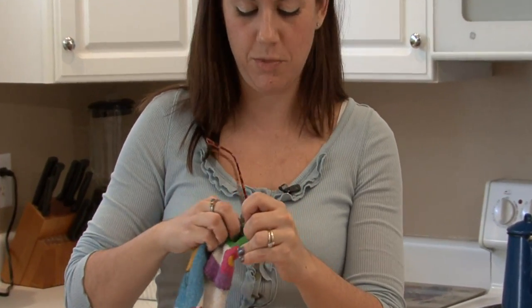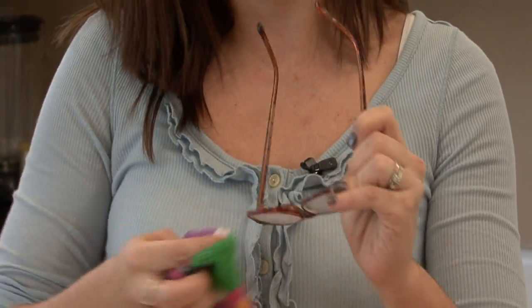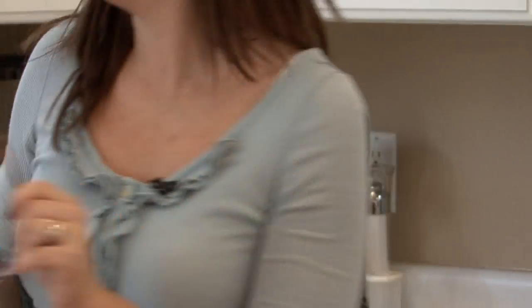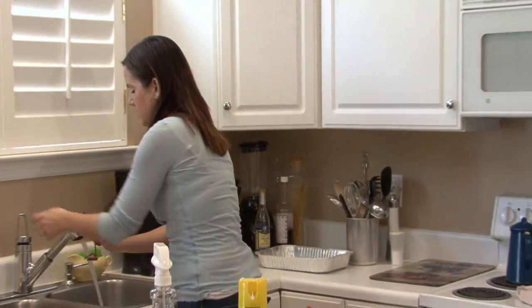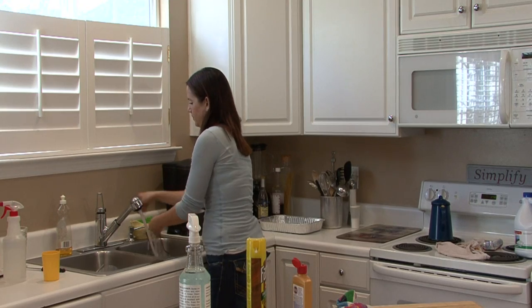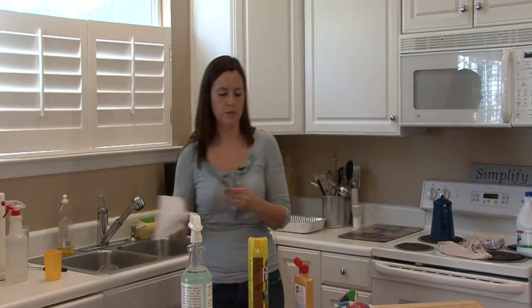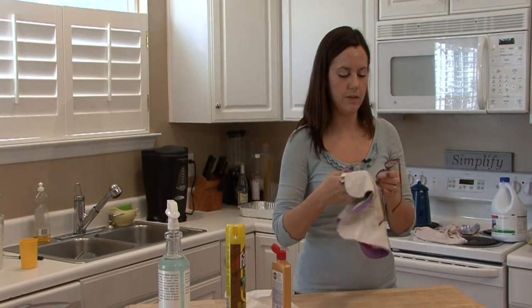Obviously this is for demonstration purposes and you don't want to stand here and watch me buff the lenses for three to four minutes. But after you rinse them, just have a nice glass cleaner handy. And your glasses should be as good as new.